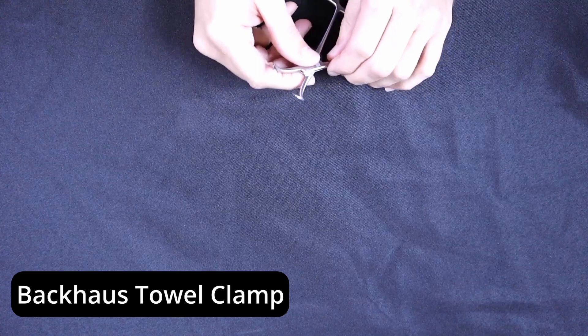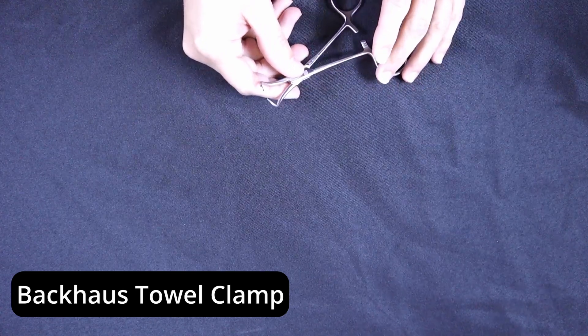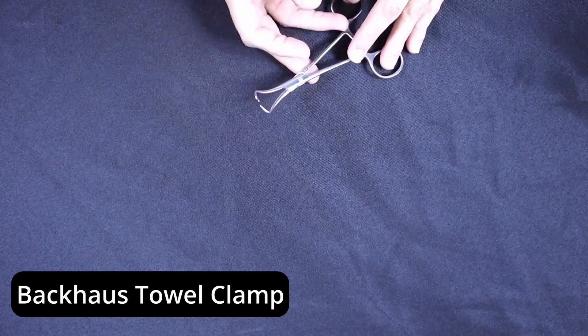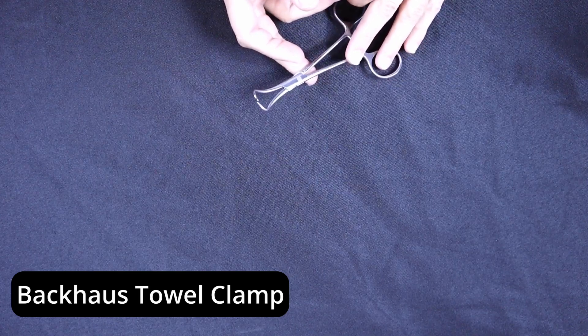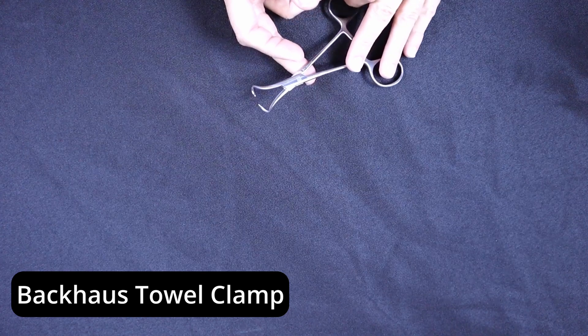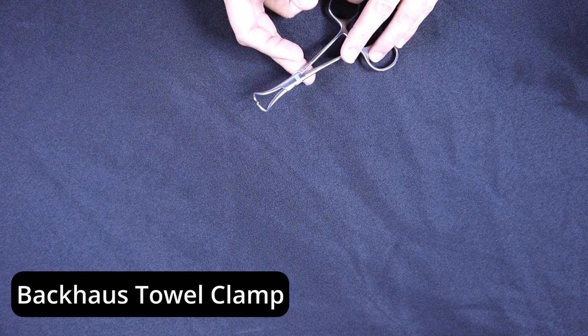As you can see, as this device closes on the very tip, they're actually a cross action — they kind of come past one another on the very tip.